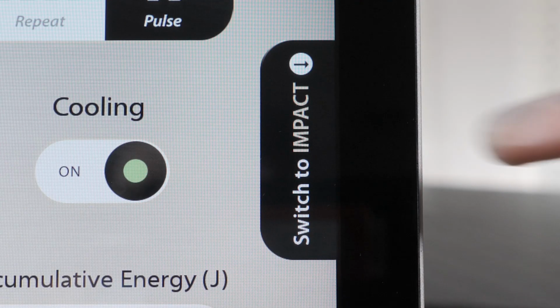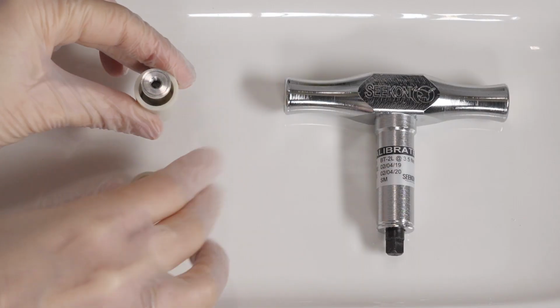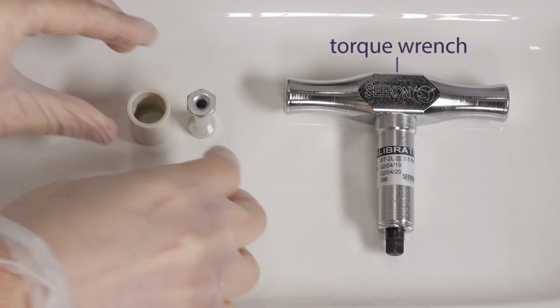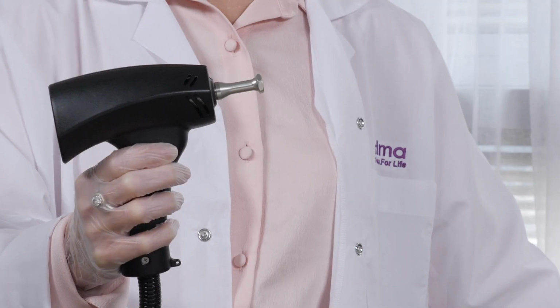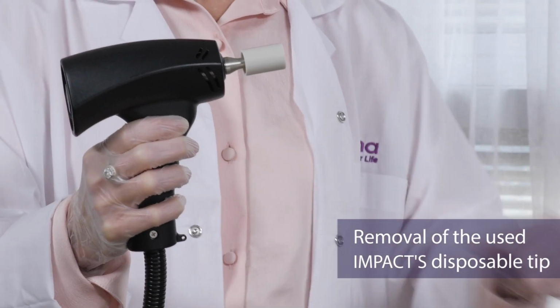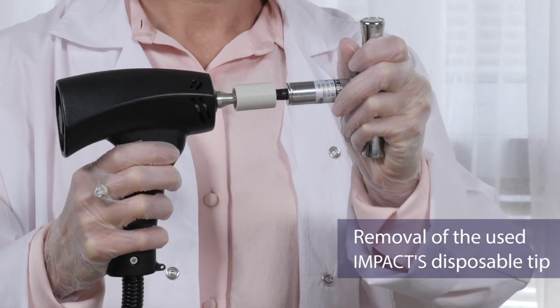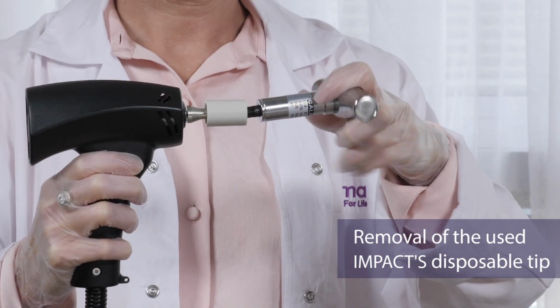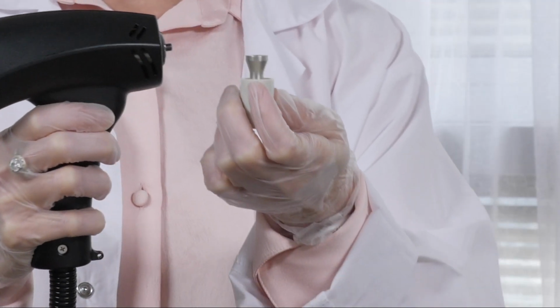Press Switch to Impact. To attach or detach the impact's disposable tip, there are three parts: the torque wrench, disposable tip, and the plastic socket. Connect the plastic socket to the used disposable tip. Connect the torque wrench to the plastic socket. Turn the torque wrench anti-clockwise. Remove the used disposable tip.